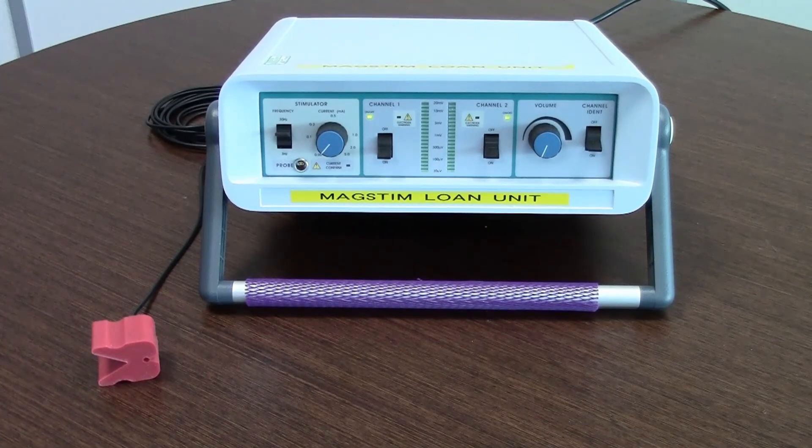The only functional test for the mute sensor is to directly connect the mute sensor to the electrocautery cable. If the electrocautery cable does not mute out when activated, you know that there is an issue with your mute sensor.